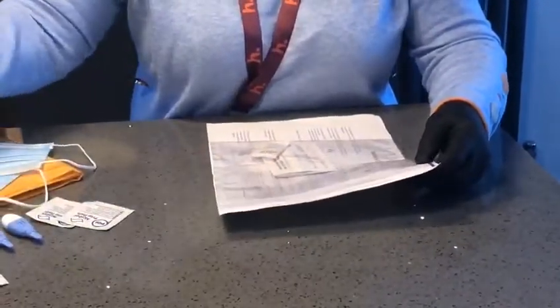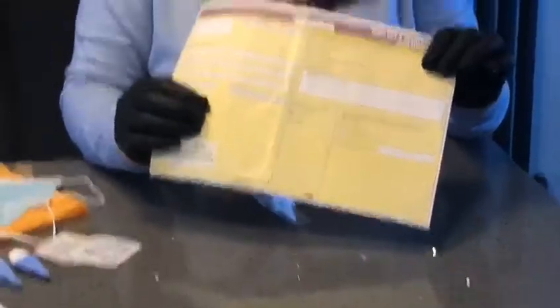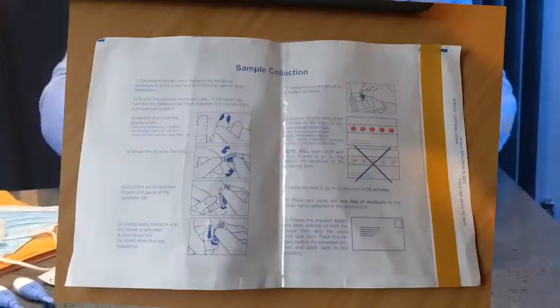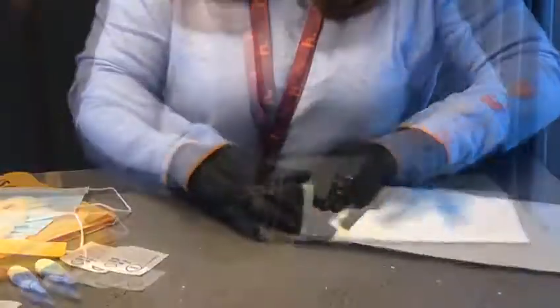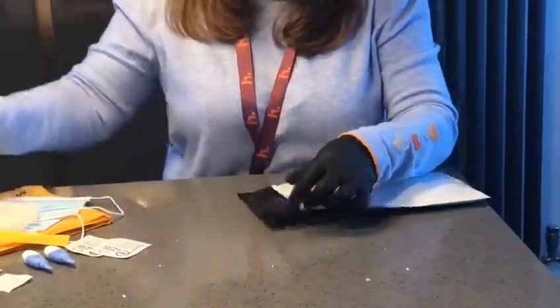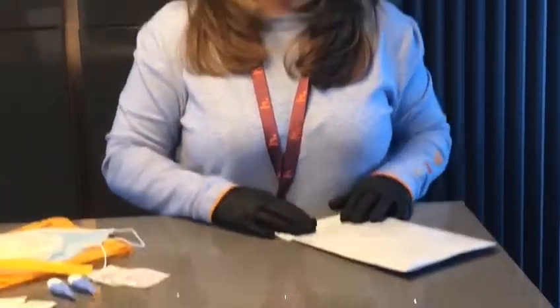Tear off the strip when you're happy with the contents and happy that the notes on this side apply to your client. Put them in an envelope, tear off the strip and you're all ready for the post box. Thank you very much for watching today's HEP clip.